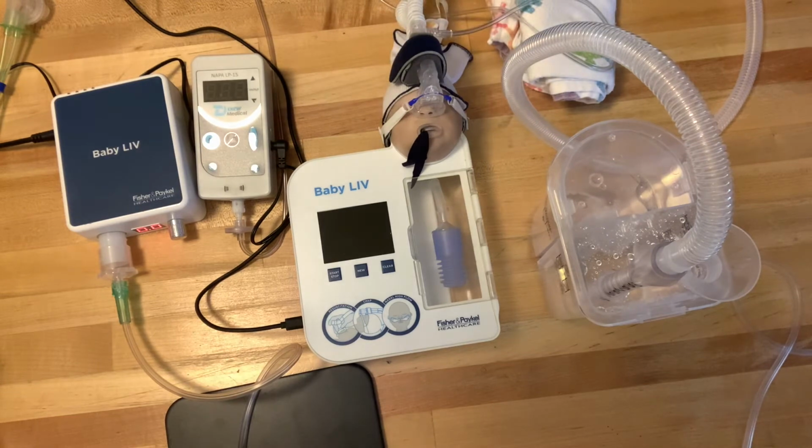I get this question a lot out there in the field. Do interfaces play that big of an impact on pressure or flow when you're trying to provide CPAP? The simple answer is yes. I'm going to go ahead and demonstrate that to you today. And then I will also talk about what impact water has on a bubble CPAP system with the expiratory limb.